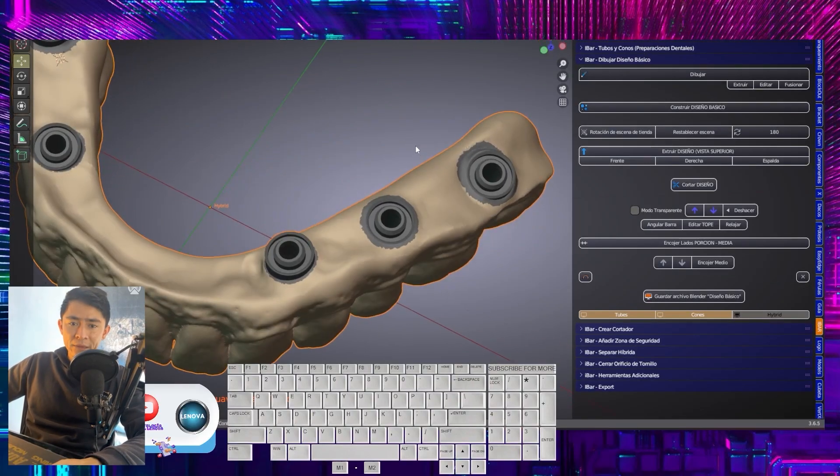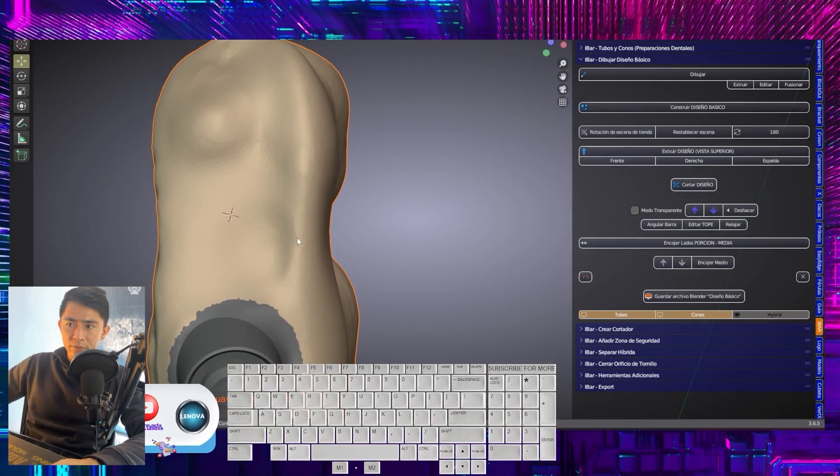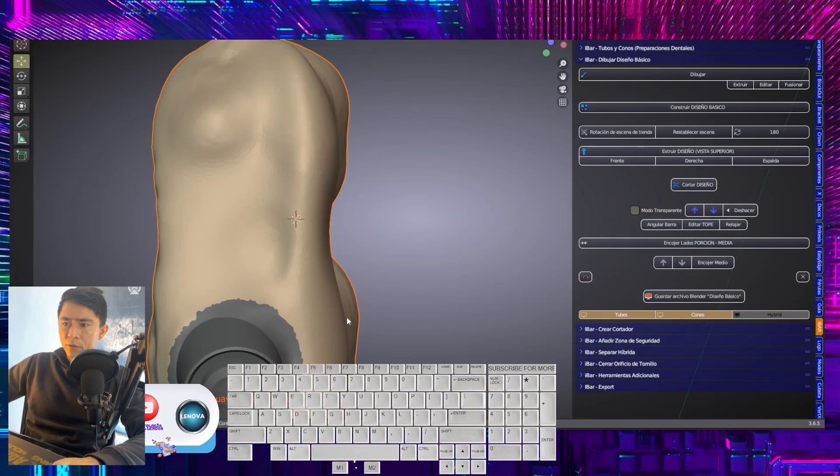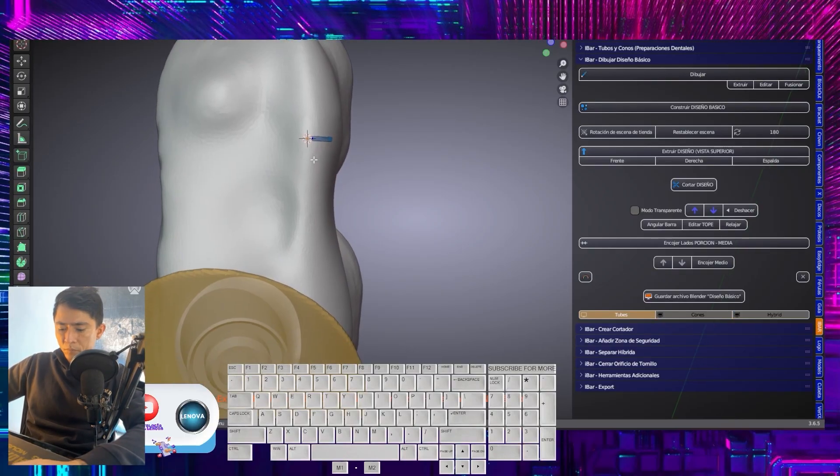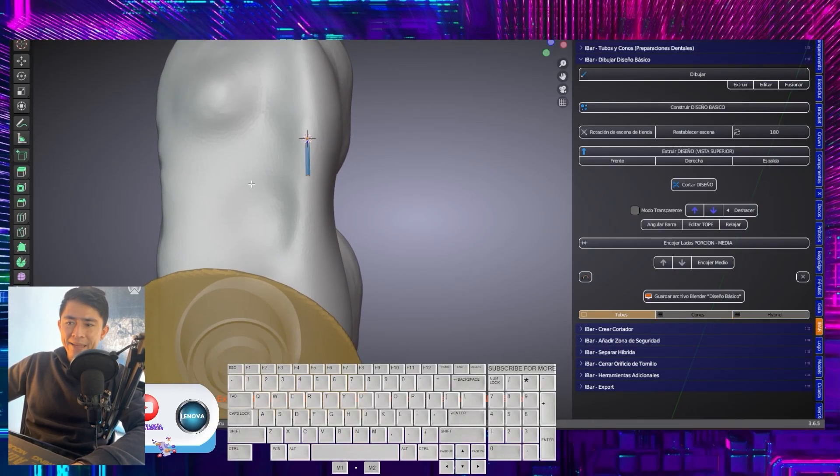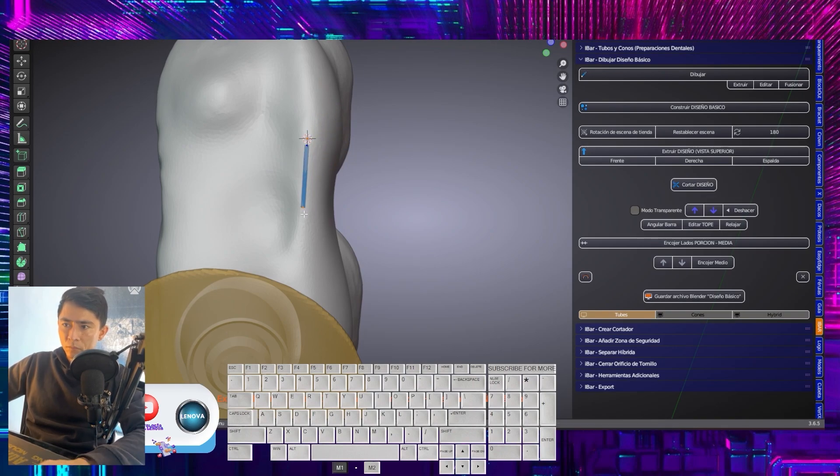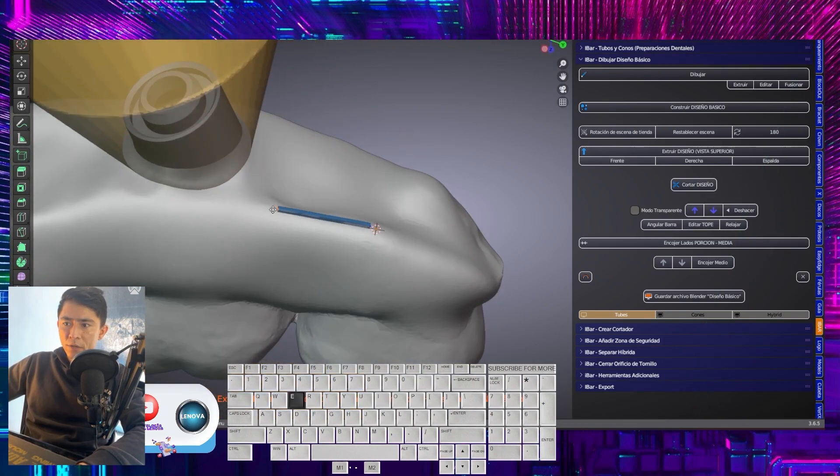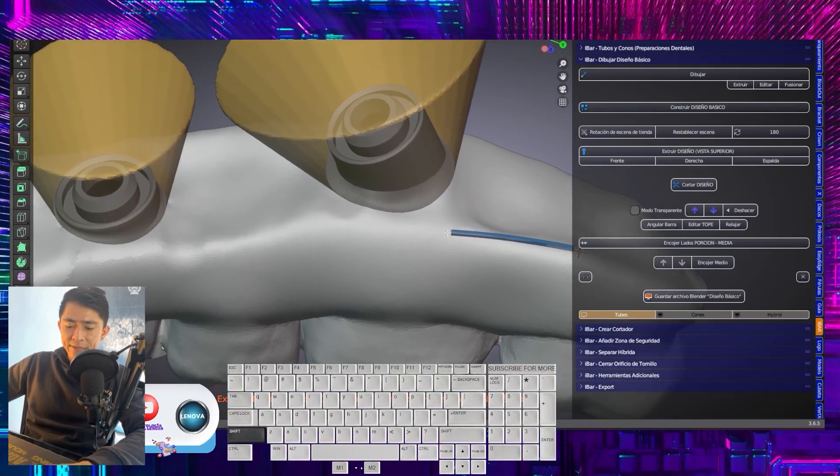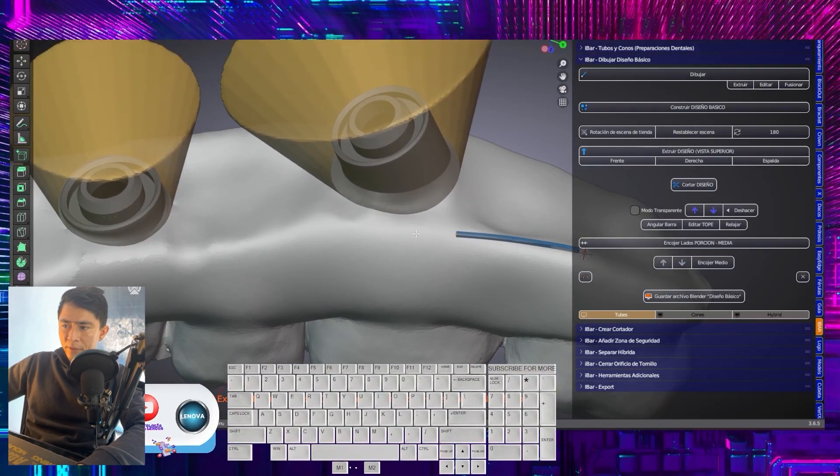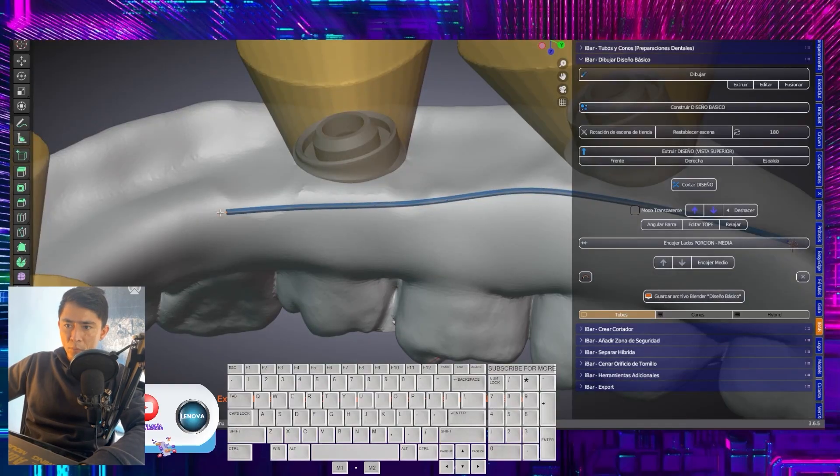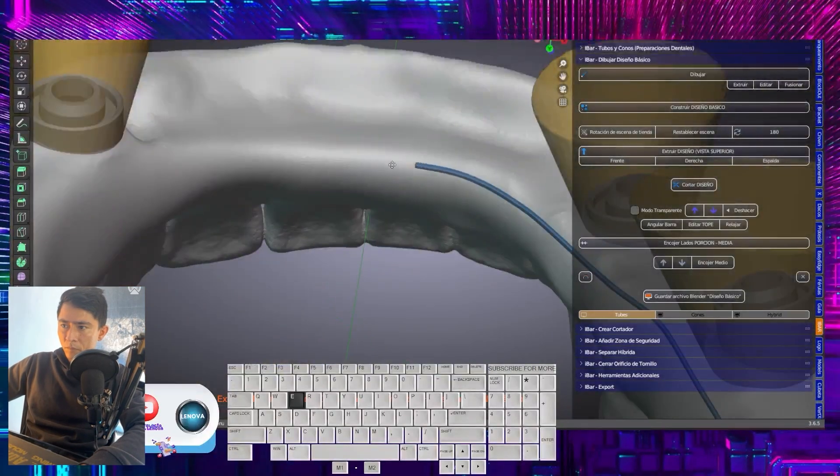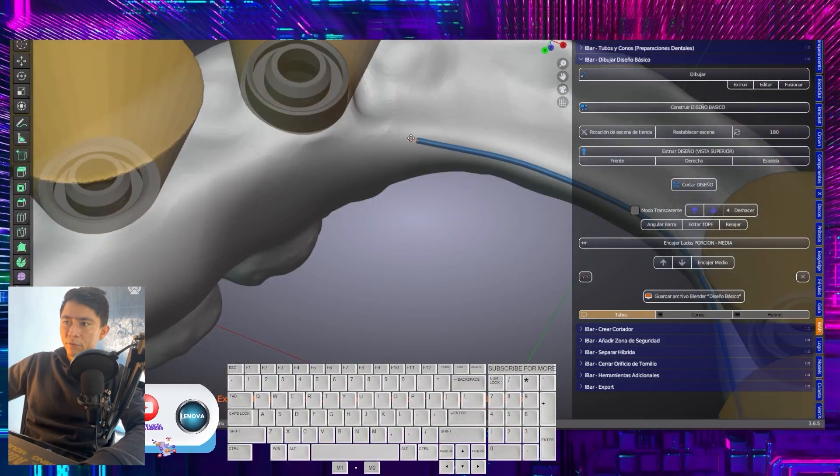Here we are going to outline our bar. I will position the cursor, select, place it, and then indicate draw curve. With the G key, I position this node. And I start with the E key. And left click. E, left click. E, left click. In that way, I am setting each of the knots that I am extracting for myself.